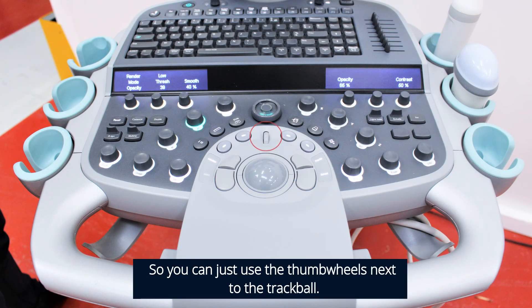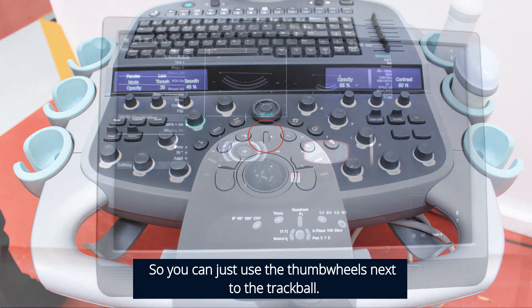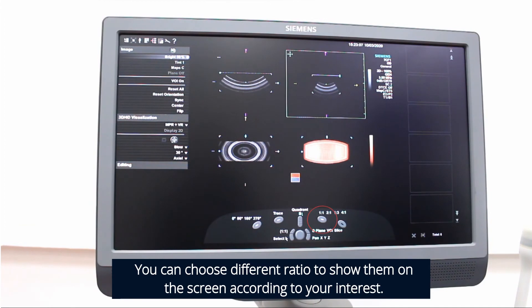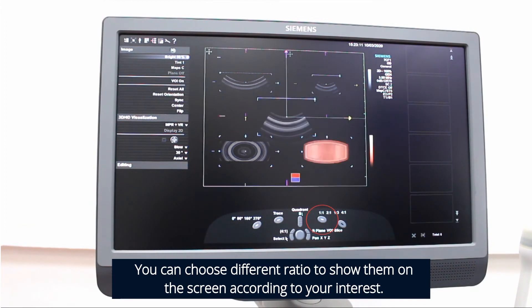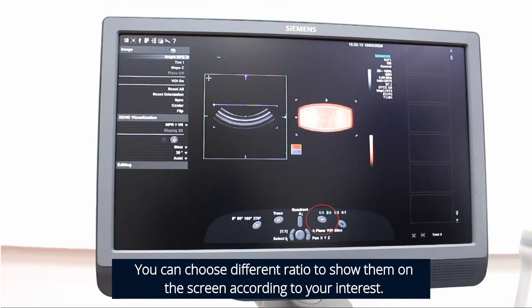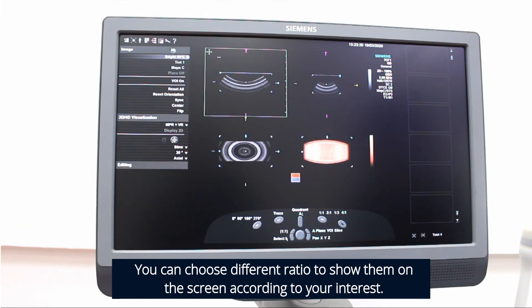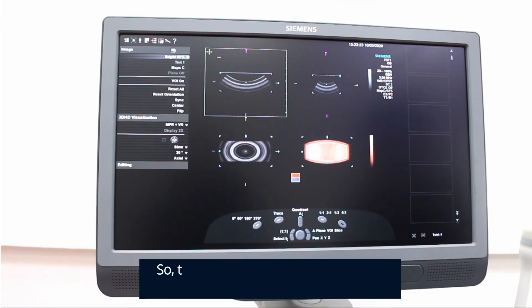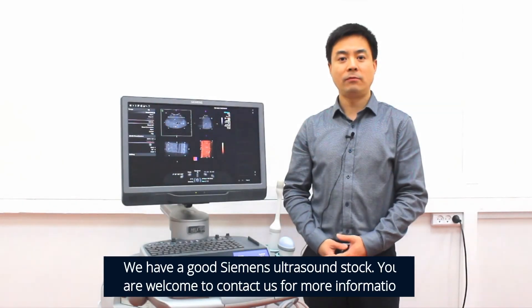You can use the thumb wheels next to the trackball to choose different ratios to show the images on the screen according to your interest. That's the application for the 3Scape imaging option.